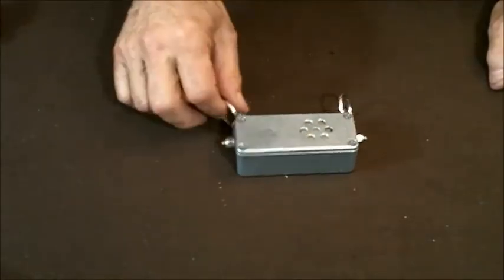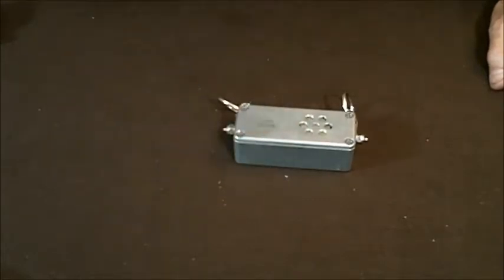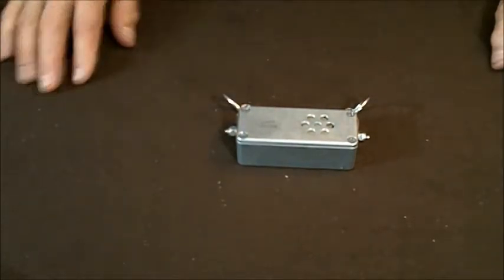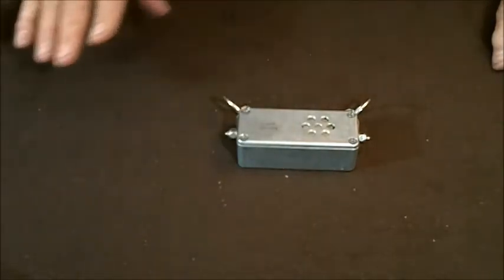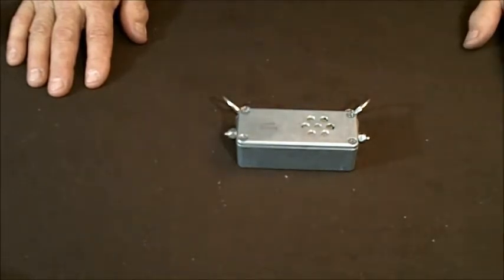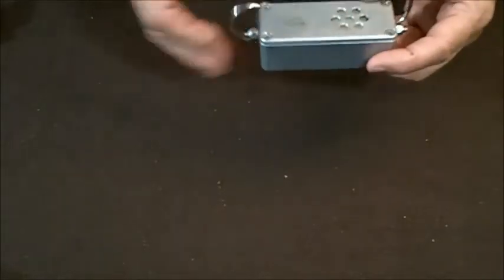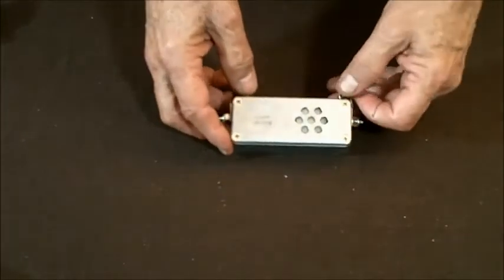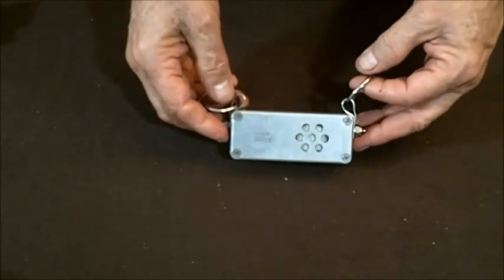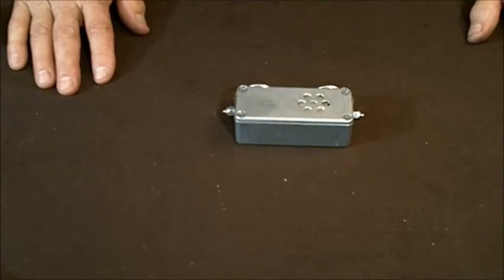The only repairs you're liable to have to do is replace the rings, or somebody might have to re-solder a new front panel with a transducer in it. If you need that, most of the time you send it to us — we'll send it back and we won't charge you for replacing the transducer, one time in its life. If you want it done really quick and your dog's stressed, you might want to pay extra for air shipping. And if you don't get the results you want in 30 days, you can send it back and get your money back, all but $25 for shipping and handling. So far we haven't had one back. Thank you very much — that's the complete teardown and reassembly for the Blind Sight S.